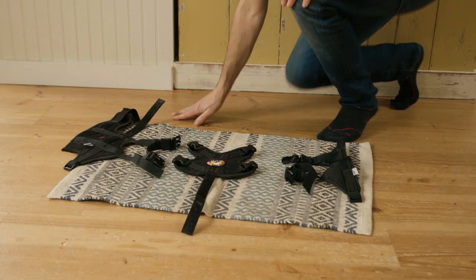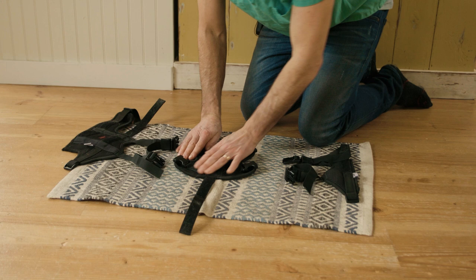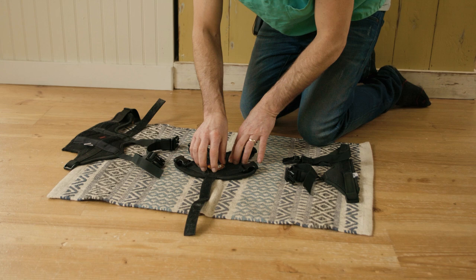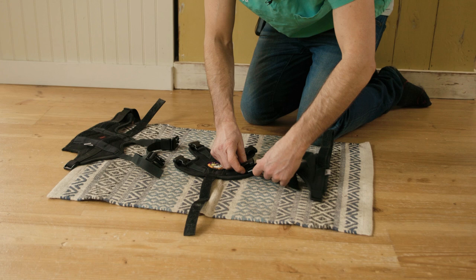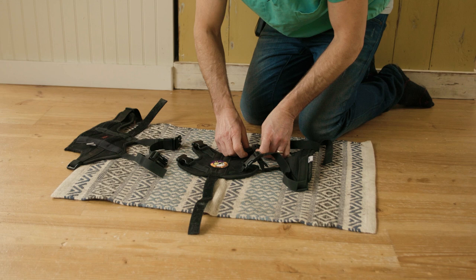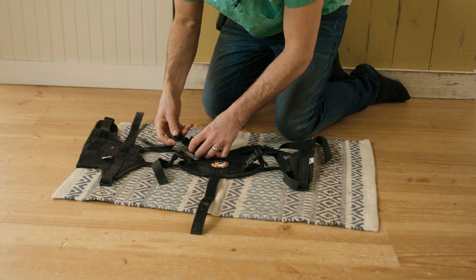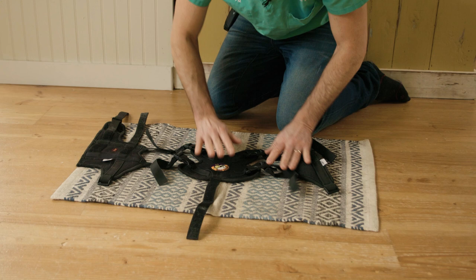Here are all three parts of the braces. Here's the central back support brace which hooks up onto the chest harness. You're going to make sure you center the Ortho Dog symbol right in the middle of your dog's spine. Then we have clips for the left uninjured leg — that's the support brace. Lastly, we have the actual supportive ACL knee brace, marked right. The right and left labels are on the outside, so you can unclip all the velcro straps and lay them out flat.